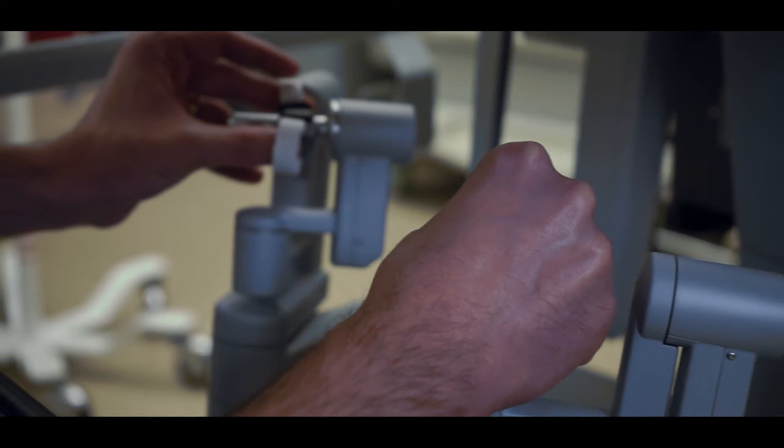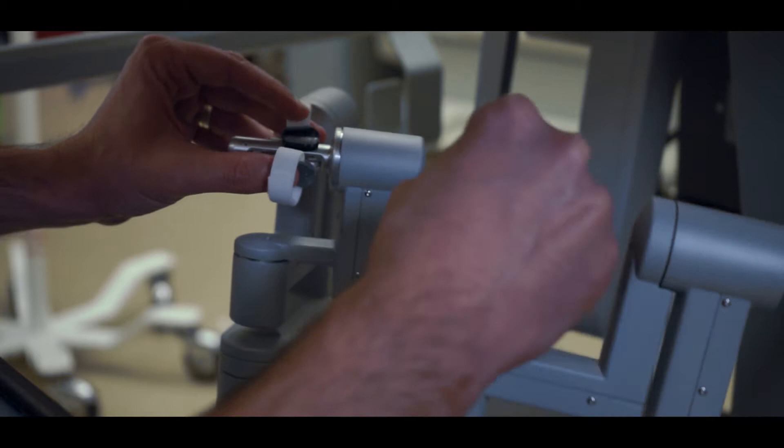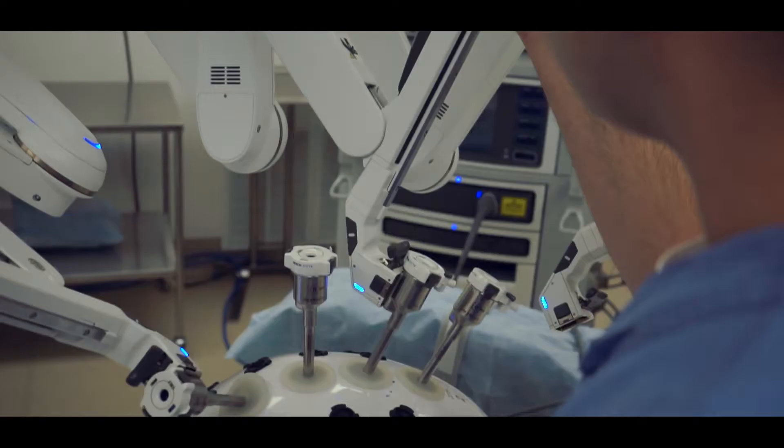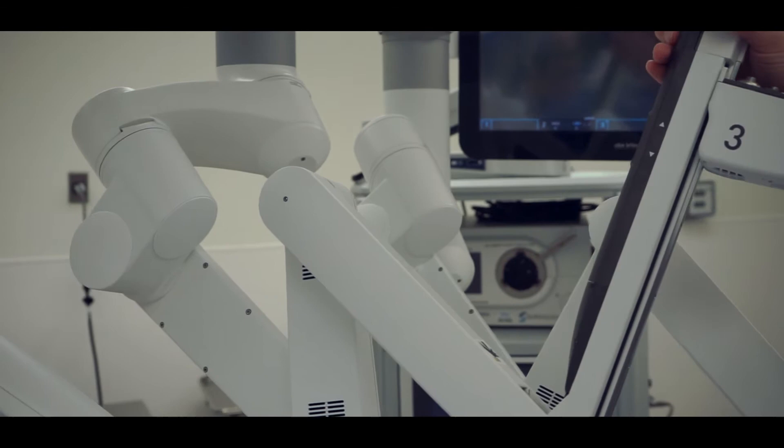Additionally, the hand controls here allow you to control the instruments inside the patient in a very precise way. The robot is not autonomous by any means. It will not respond unless your surgeon is controlling the robot from this console.